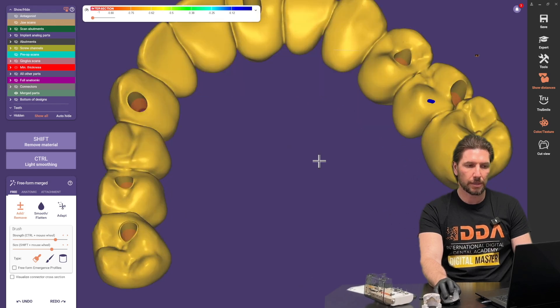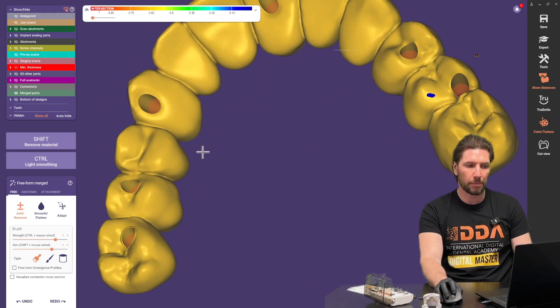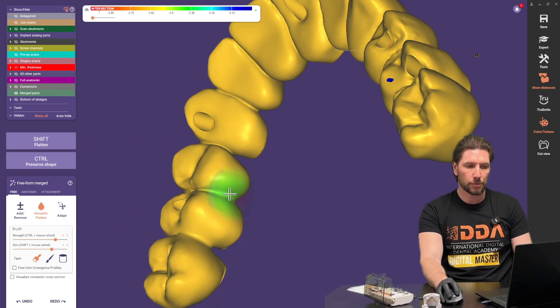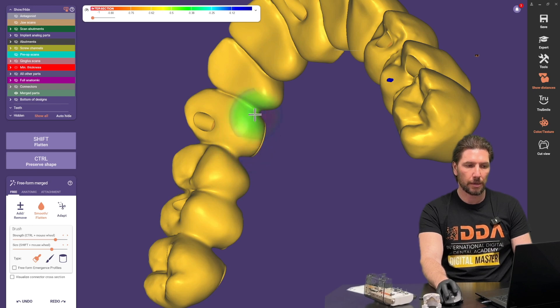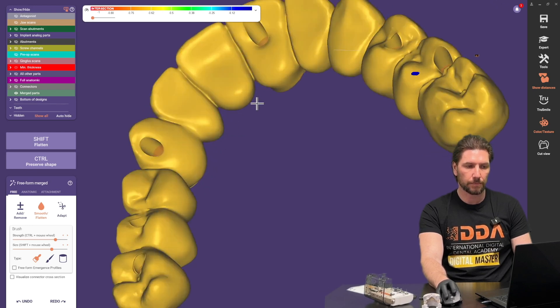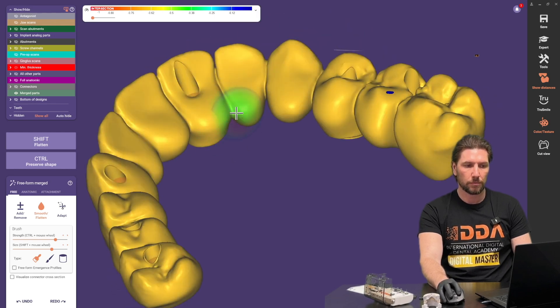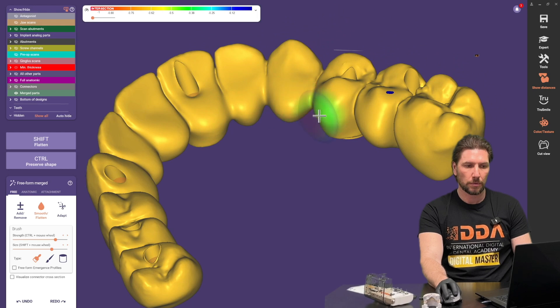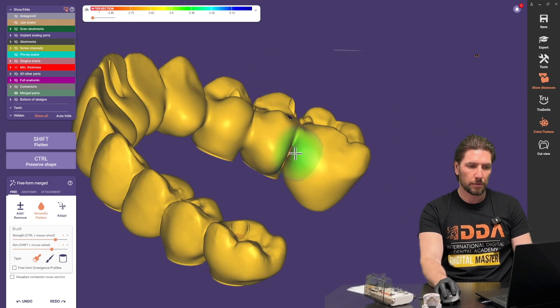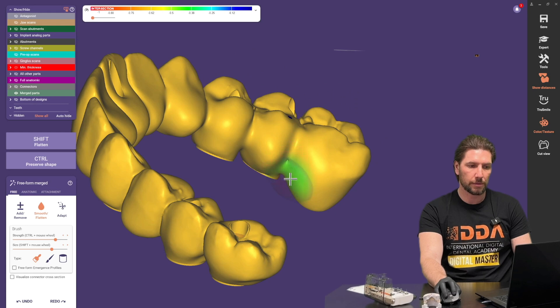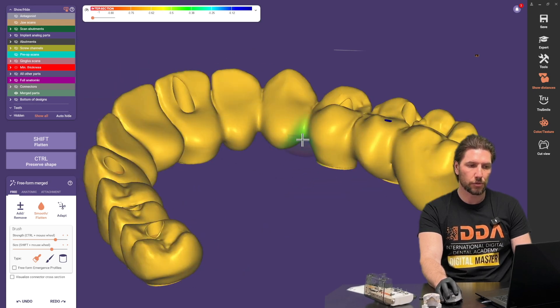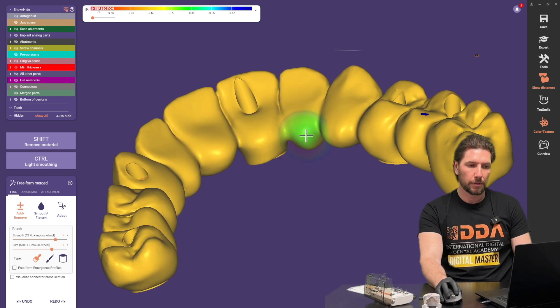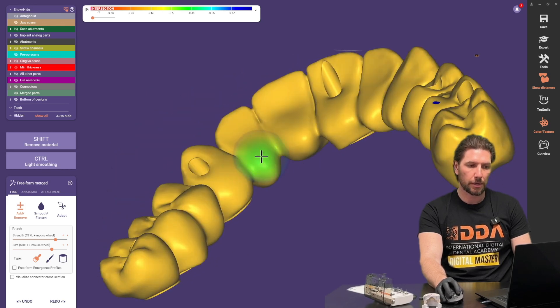If we've got for example someone with a heavy bite and then I'll go in and just to make it more cleansable smooth out these contacts on the incisor and in the proximal areas too. I'm not going to be looking at this the patient's not going to be looking at this so you want to make sure that this patient can keep everything as cleansed and nice and easy as possible and also by doing this we're increasing the strength because we're giving this area the connectors a lot greater surface area.